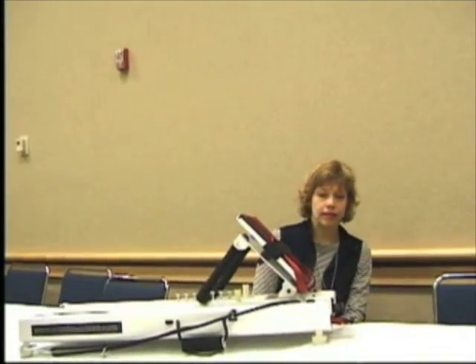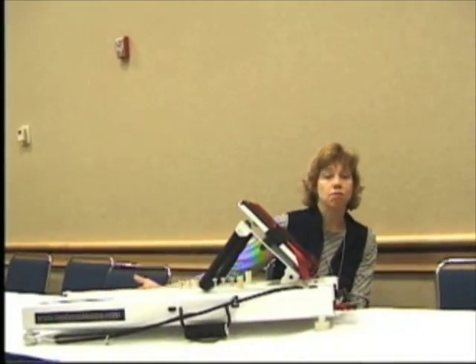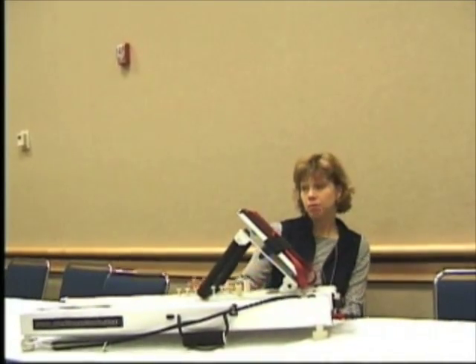The beauty of the Mini Clinic is that I can start from a very low load of about 5 pounds up to 80, 90 pounds of resistance. Not surprisingly, most of my patients by the end of training are exercising at the maximum capability of the machine, which is really wonderful. So I can get the high intensity loads that I like with this machine.